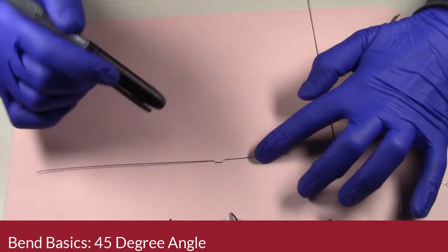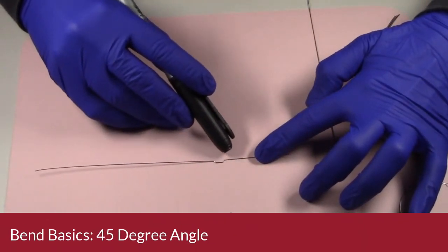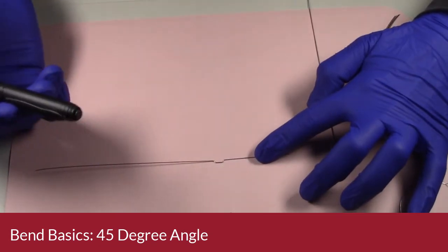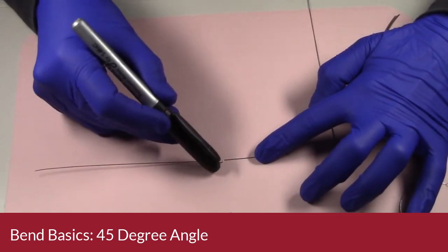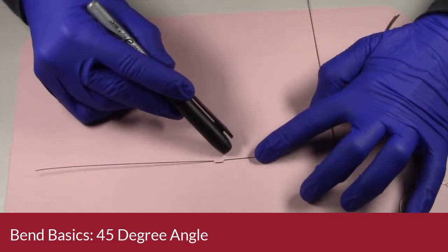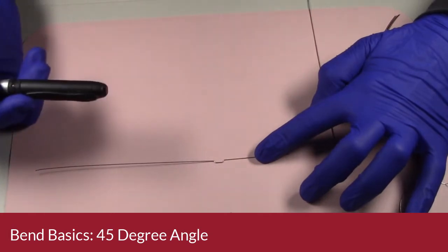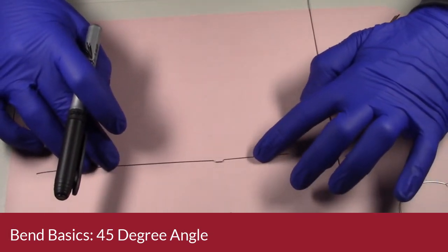to look like. So just basic bending, you want to create a 45-degree angle, and I always say it looks like a tabletop. So it's got two little legs on either side, and then it's got a top right there. So the legs need to be 45-degree angle to the wire. So always keep that in mind when you're bending wire.